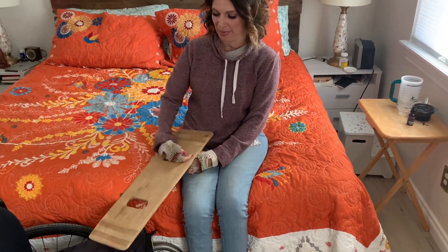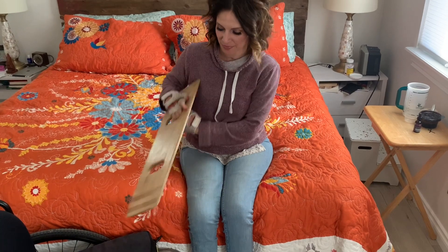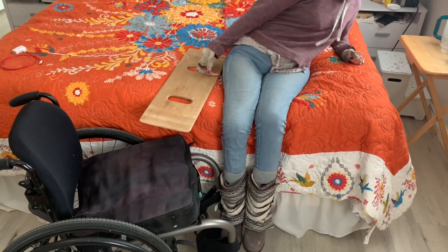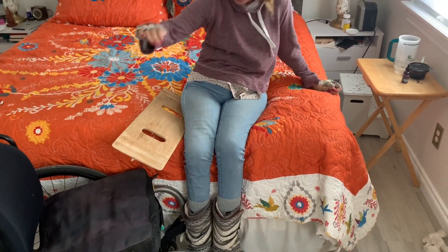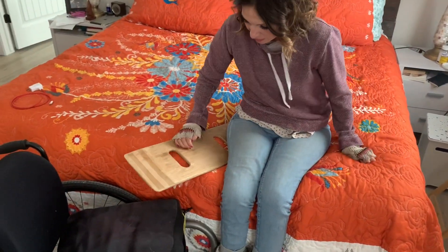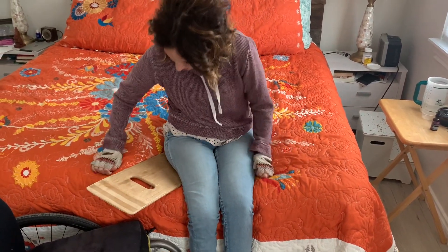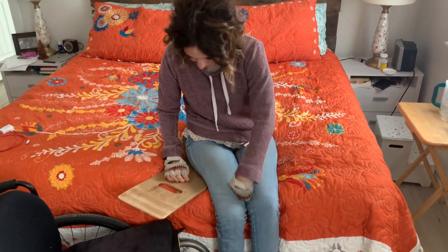So this has grip — it has a little bit of grip on the one side, so I put it on the side that I'm going to be scooching from, because then it will scooch less onto the — onto the — I feel like I'm a tiny bit far away.